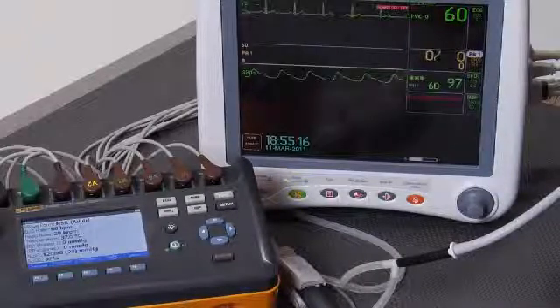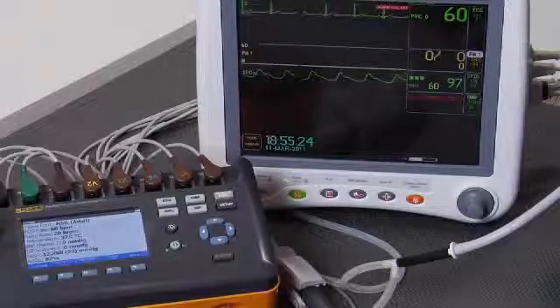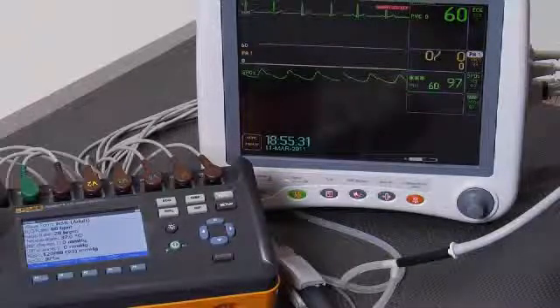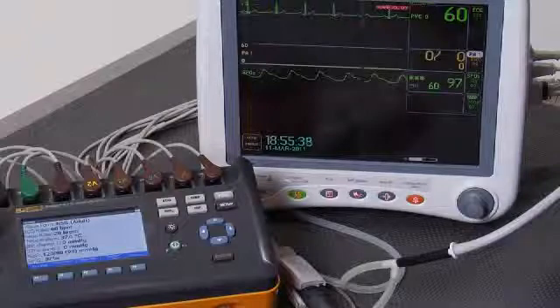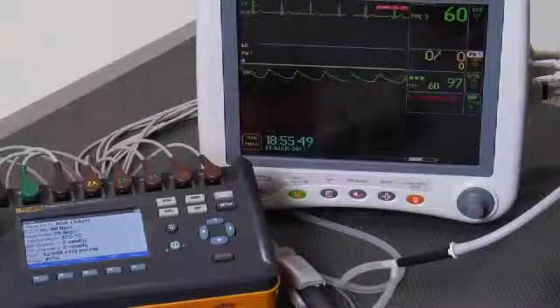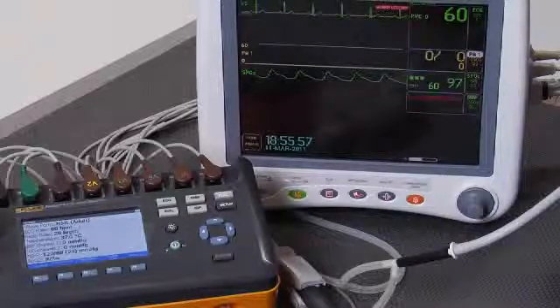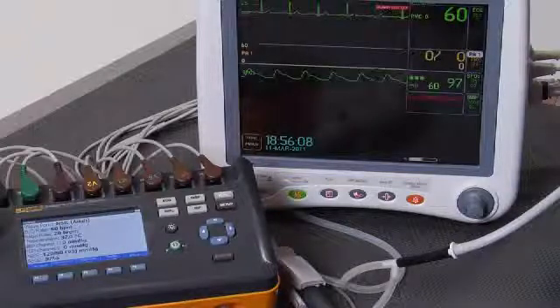As you can see, there's a digital clock shown in the lower left-hand corner of the patient monitor display, so you can be your own judge as to whether we can get through this test within 5 minutes or not. We are already connected to the device under test. All of the connections have been made ahead of time, including the NIBP cuff. We are going to zero our invasive blood pressure transducers on the patient monitor as the very first step, followed by a selection of a simulation of all coordinated patient parameters — hypertensive first, then normal, then hypotensive — in order to assess whether we have a performing patient monitor.